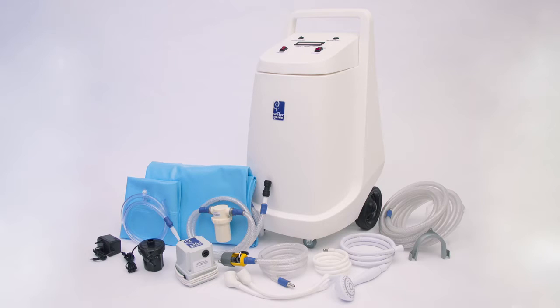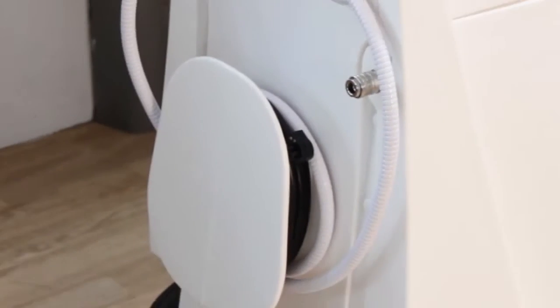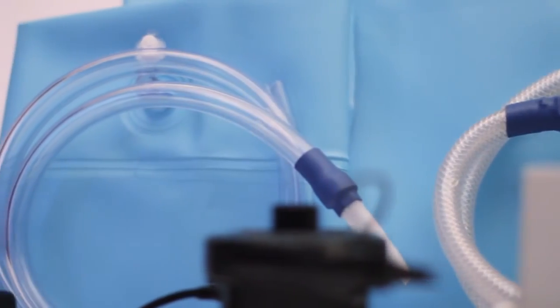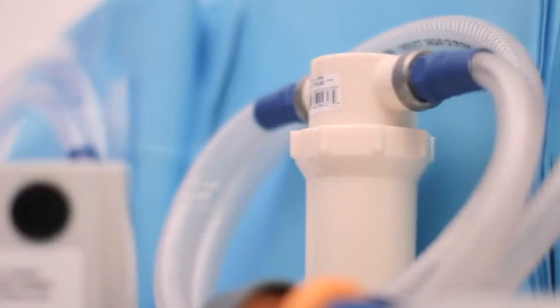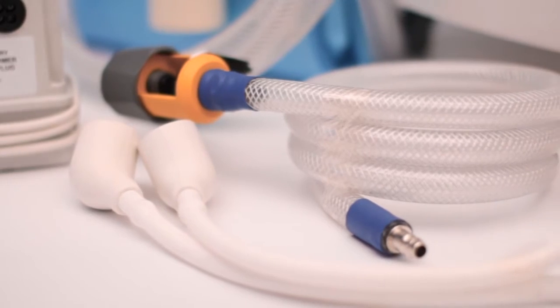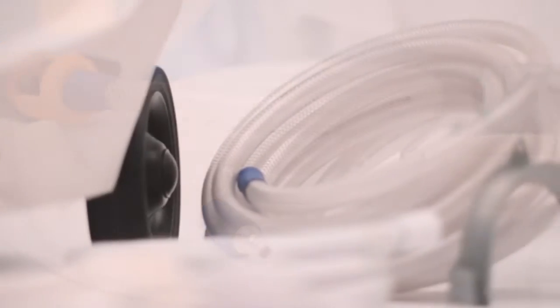Your Watergenie will consist of the following equipment: Watergenie unit, bath, inflatable pillow, transformer, filter, inflator, shower, several filler hoses to fit various taps, and waste hoses.